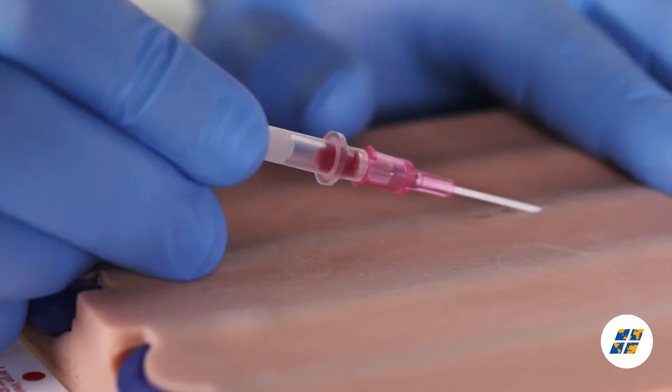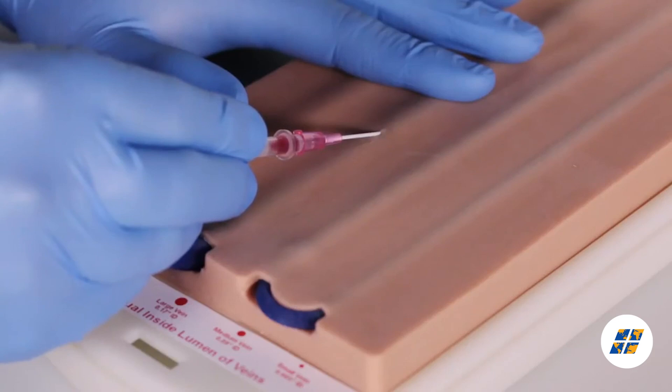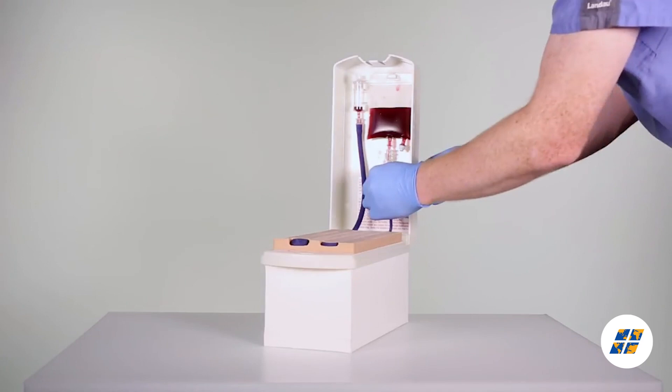The new and improved 2365 Advanced Venopuncture Training Aid is quick and easy to set up and store, lightweight, compact, latex-free.